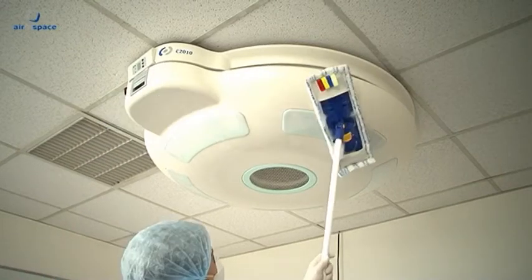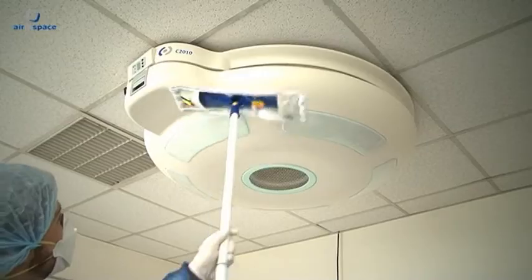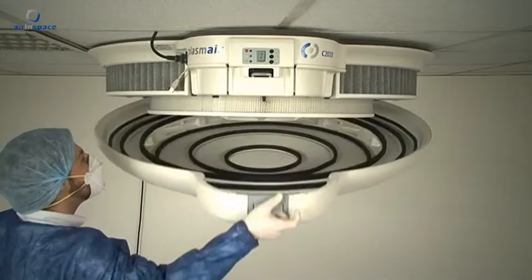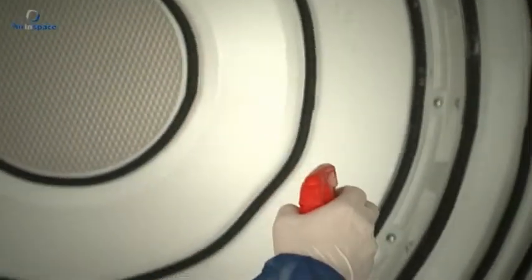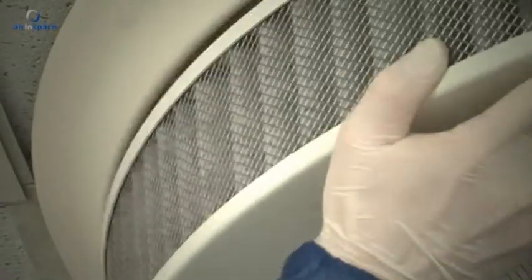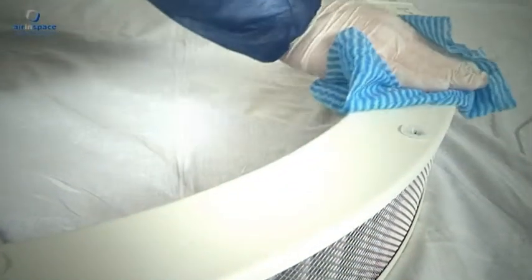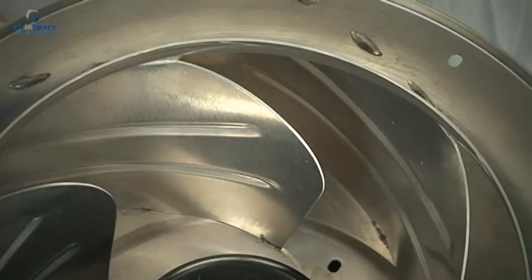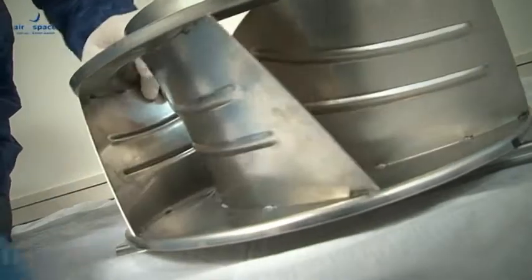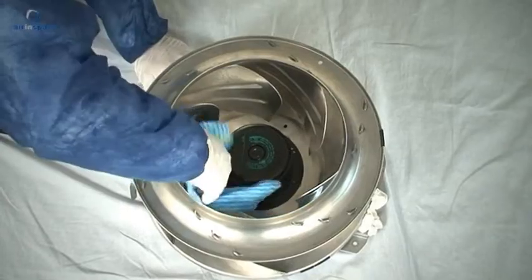Annual biocleaning: parts to be cleaned annually are the outside of the plastic cover and the control panel. Internal parts are to be disinfected. Clean the inside surface of the plastic cover and the air inlets. Remove reactor modules 2 to 4 and clean the outer casing of the reactor modules. Clean the blades of the central ventilator, accessing the ventilator from below. Warning: be careful not to cut yourself on the edges of the ventilator blades. Leave the cover off for a few minutes to allow the different elements to dry.